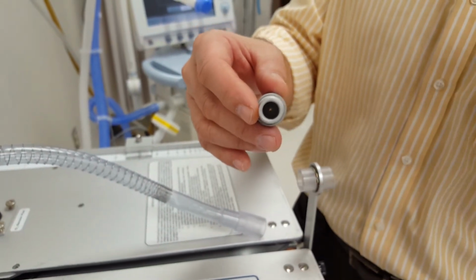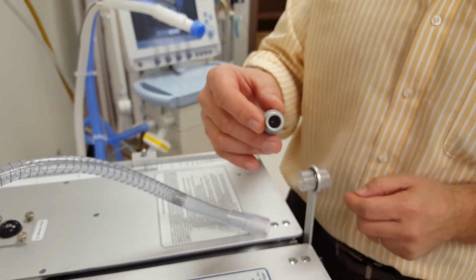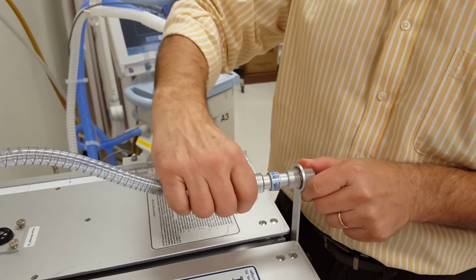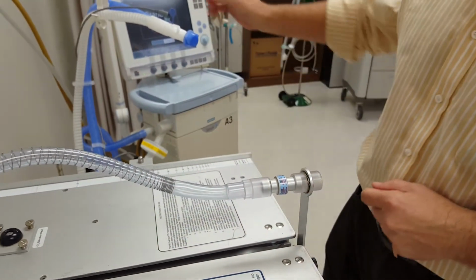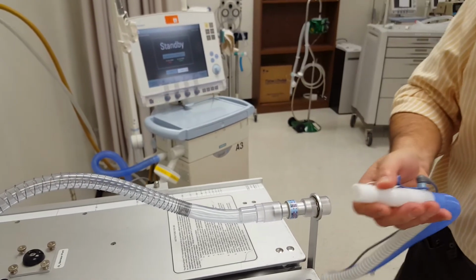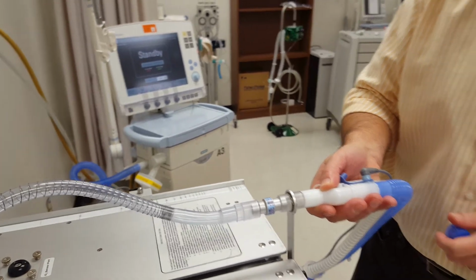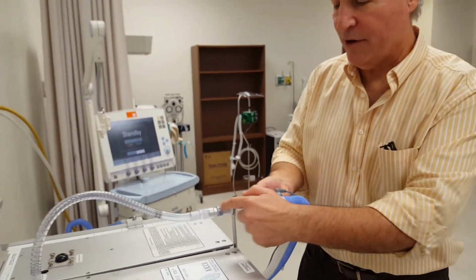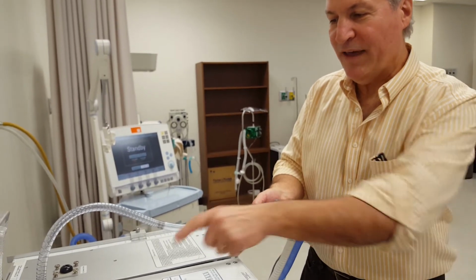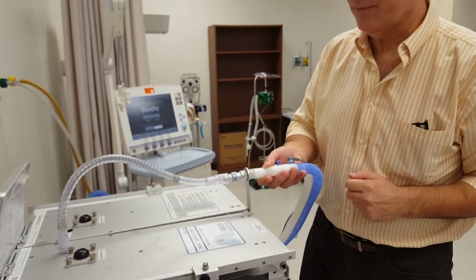So when we put this into the circuit, that is going to simulate severe airway obstruction. And the pressures, if we're in volume ventilation, are going to go extremely high. And if we're in pressure ventilation, we're going to hardly get any volume. So we're going to put this in the circuit, and now all that remains is for us to connect. If we were ventilating the patient, we connect the breathing circuit right there. Now our Raw is in line with our breathing circuit, and we ventilate this lung through this airway, just like a real patient.